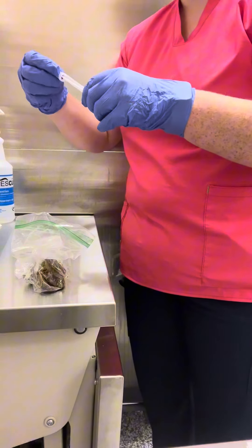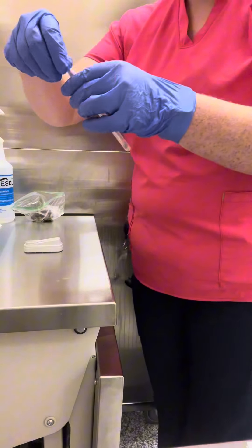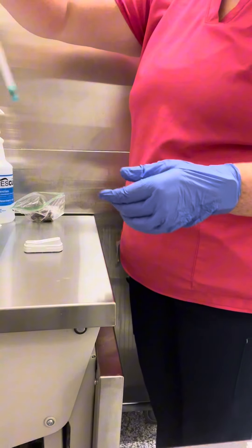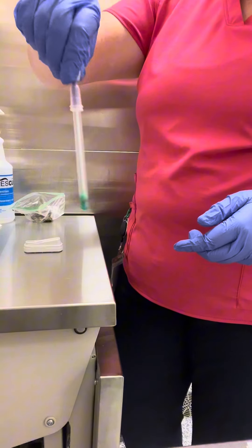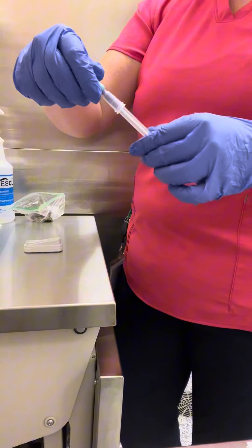Put it in my tube and break up the neck. Squeeze one, two, three. Really swirling it around and back up.